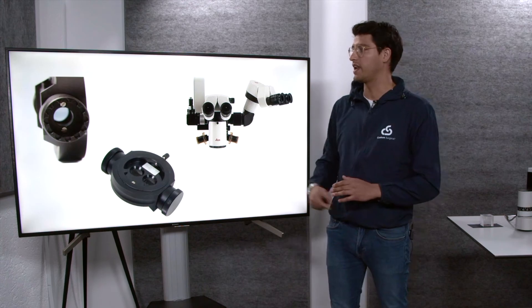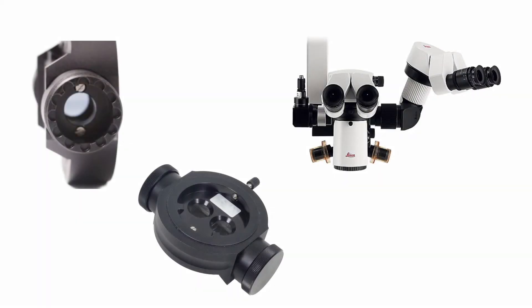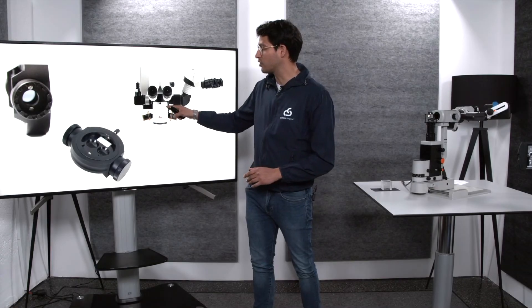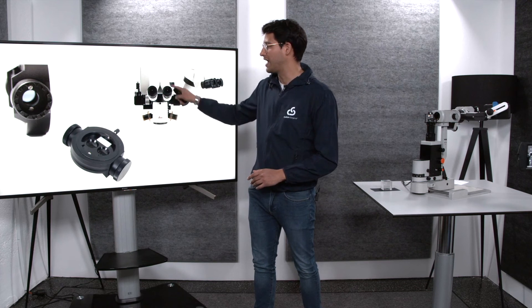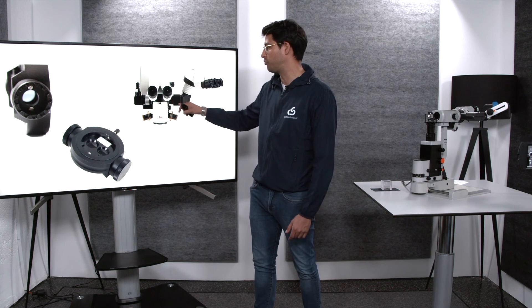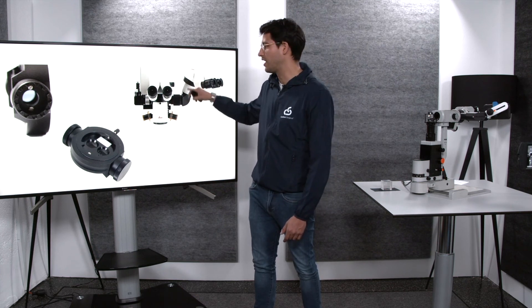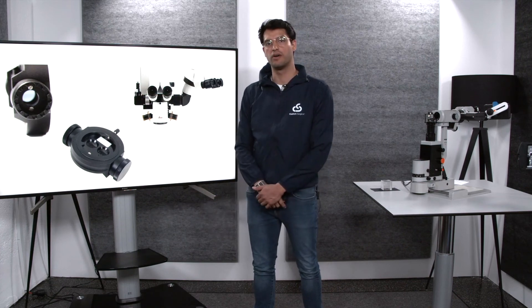Here is an example of a Leica beam splitter — this is how they look like. Usually, as you saw in the previous image and on this one, they are located between the main optics of the microscope and the binoculars. In this case, as you can see, the beam splitter is used for both some imaging for the assistant and also another port that is used for the microscope camera.